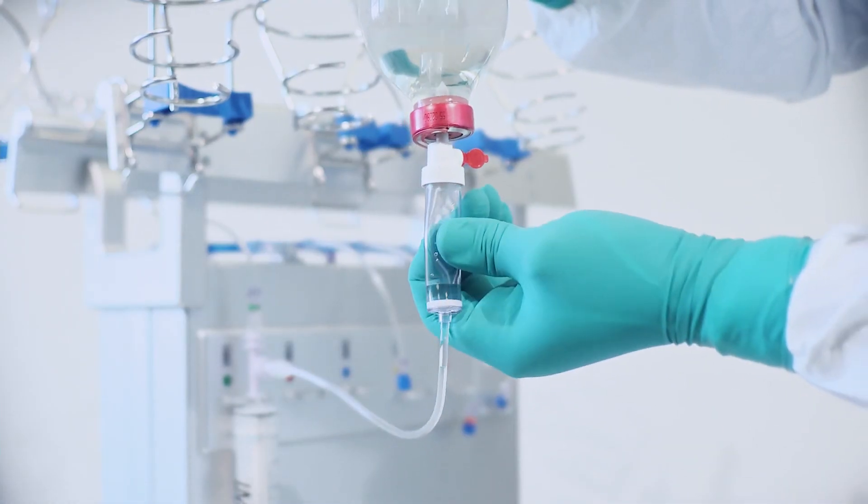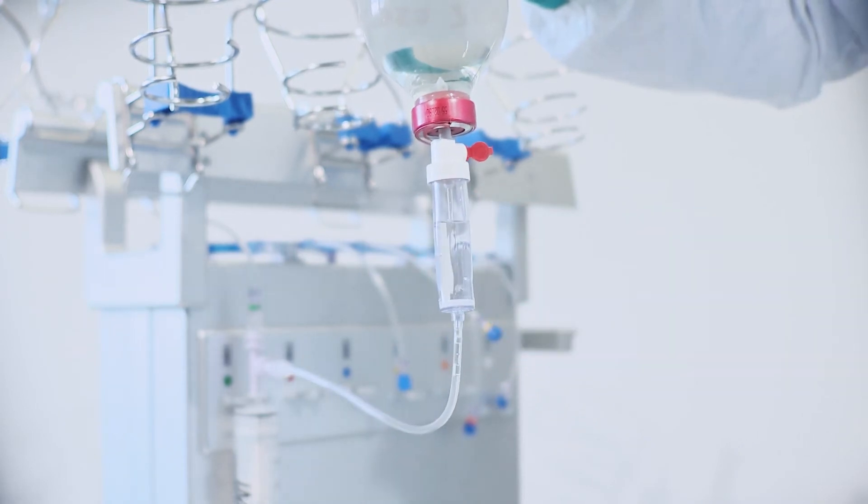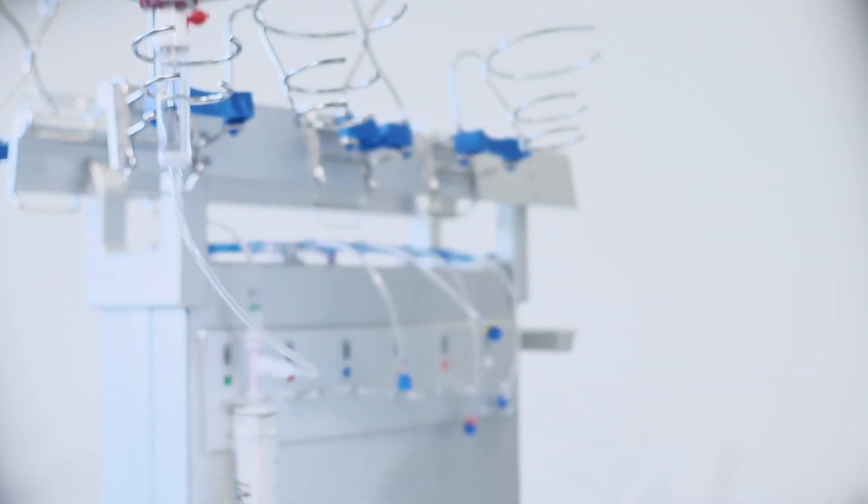Spike the ingredient using the appropriate inlet, in this case, a drip chamber. Fill the drip chamber and place the ingredient in the special holder.